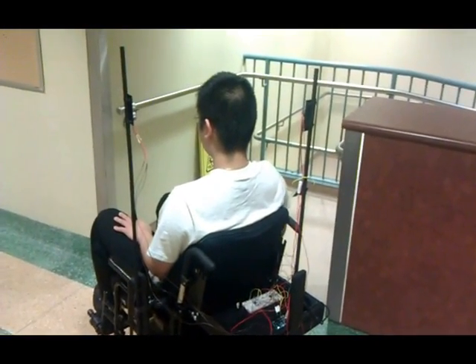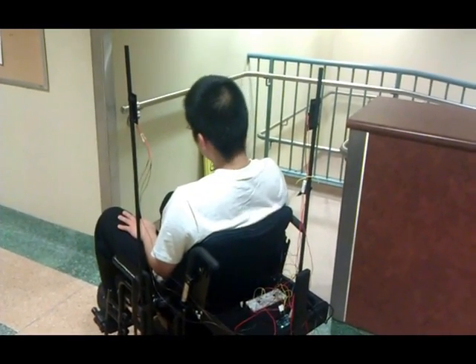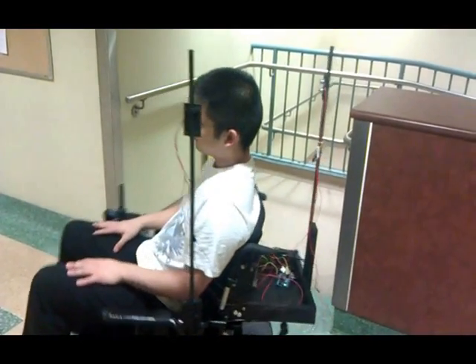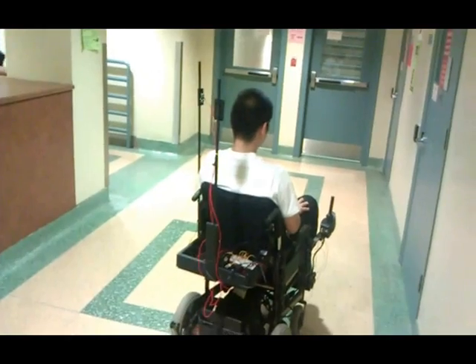Now we are going to attempt to make a U-turn, rotation, stop, and then forward again, stop. As you can see, he is in full control.